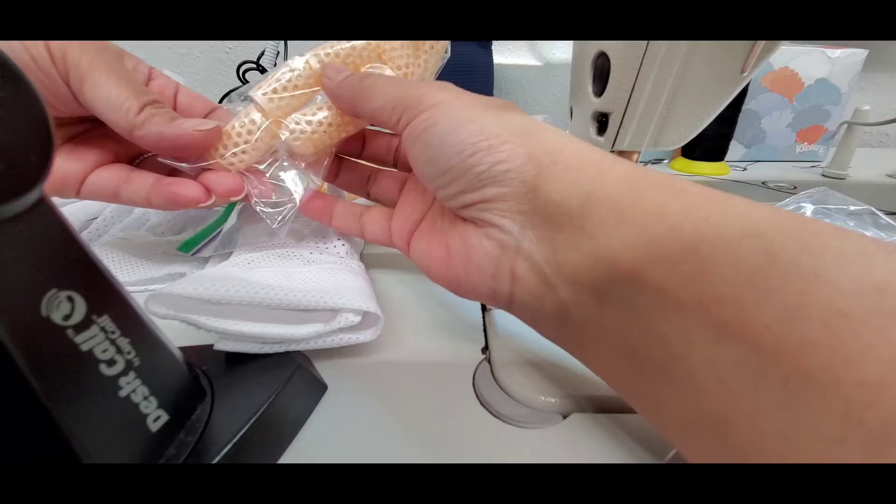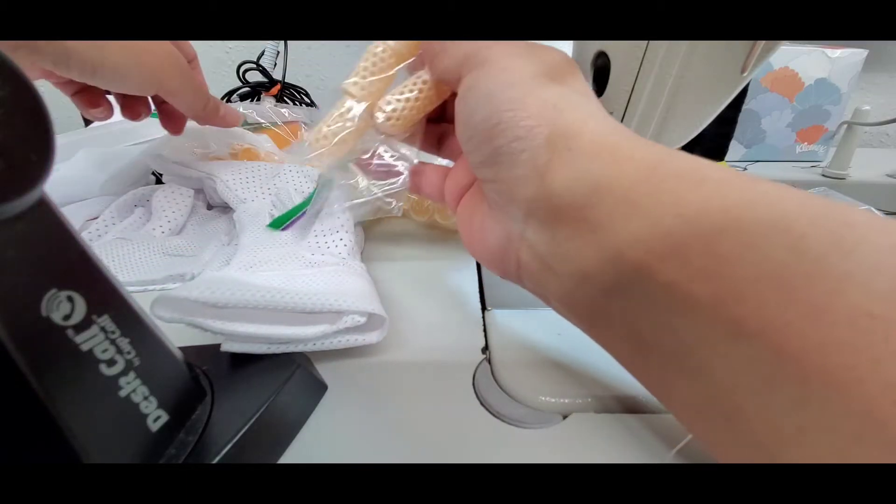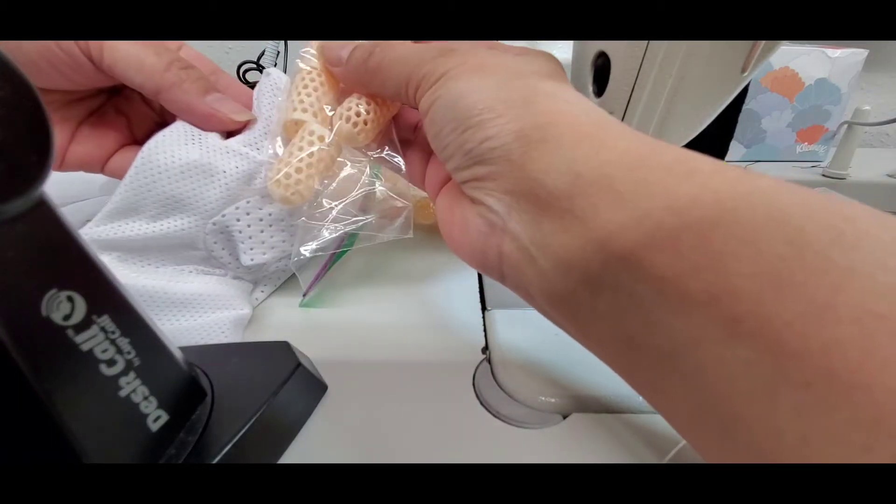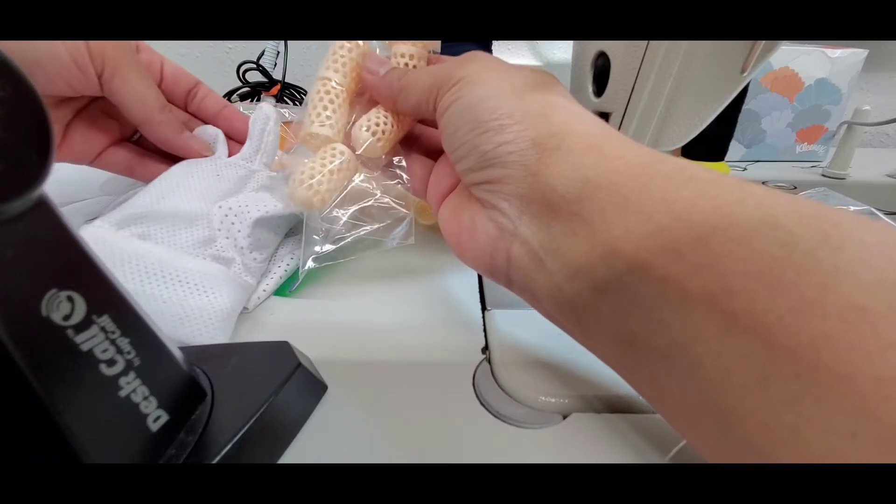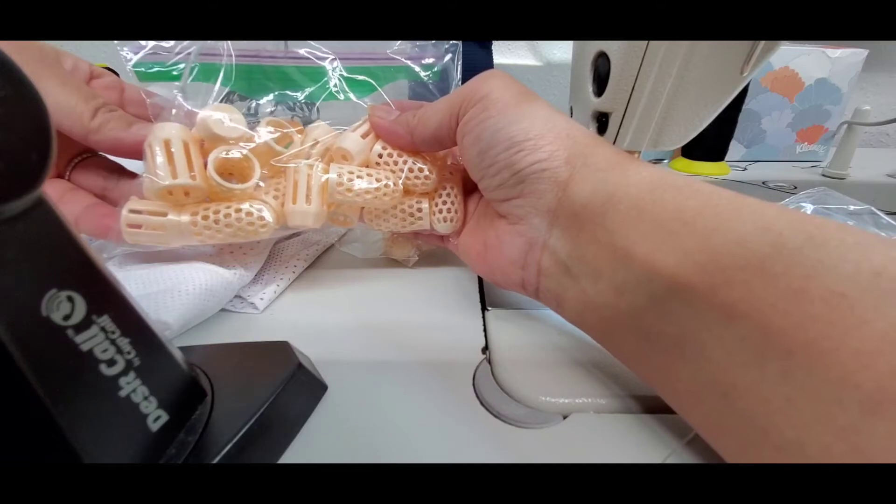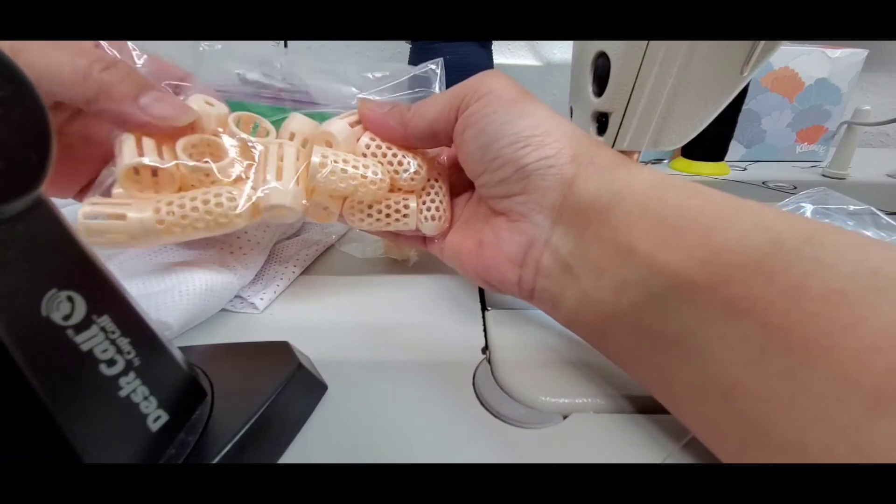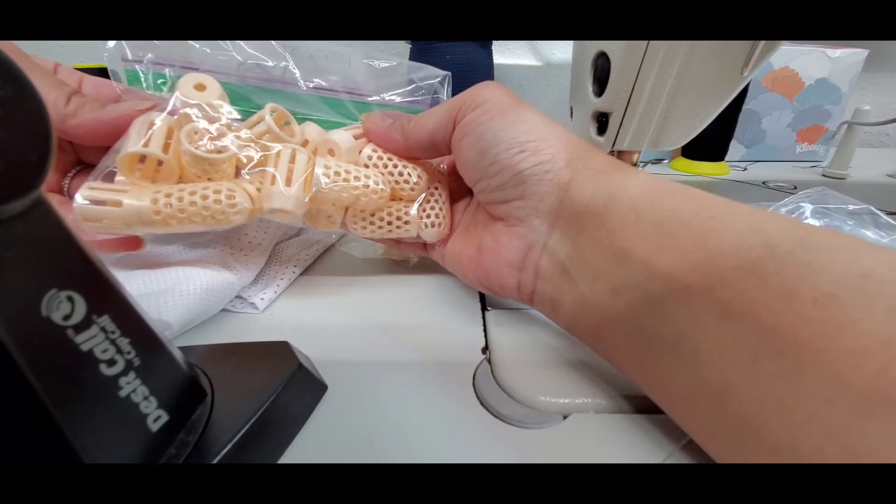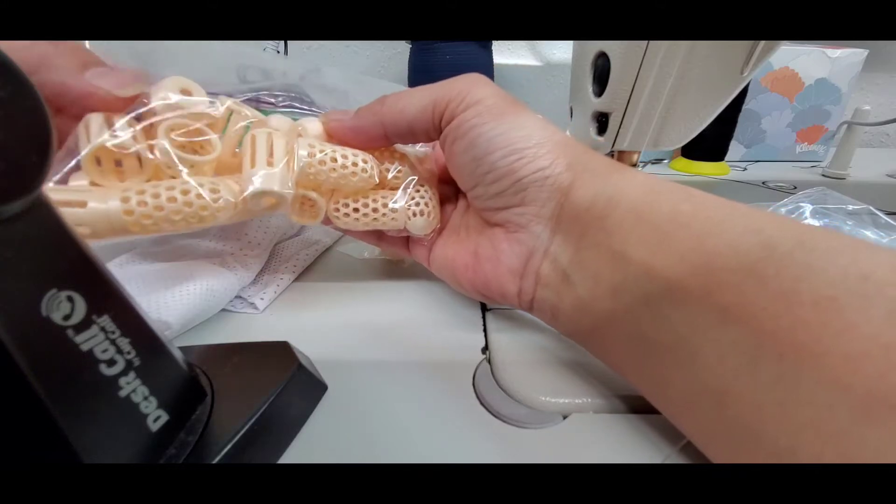These are about the length of these fingers here. I have another set here, these are slightly different. These are for sturdier protection if they have to chomp really hard on their fingertips. These are much stronger up here.